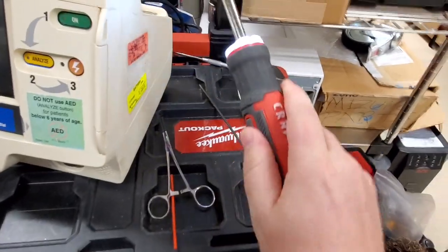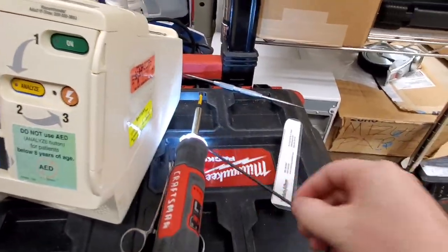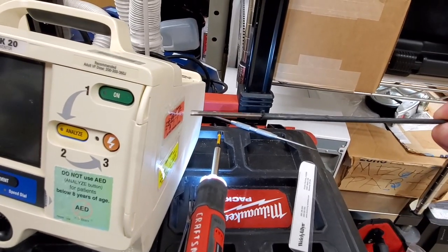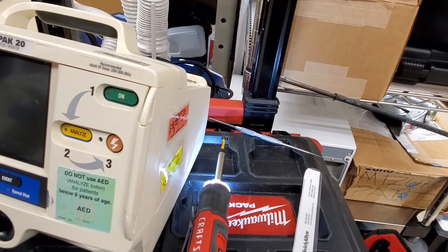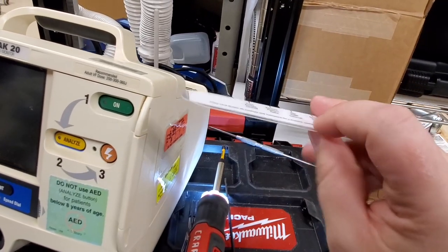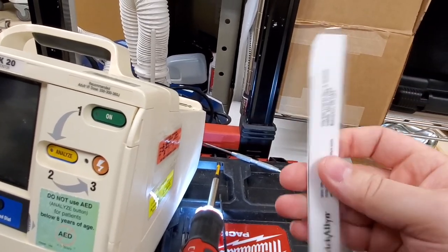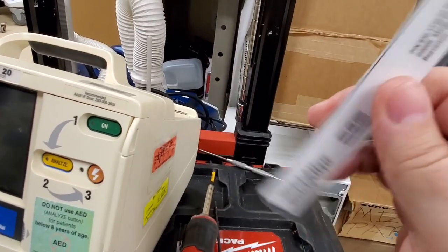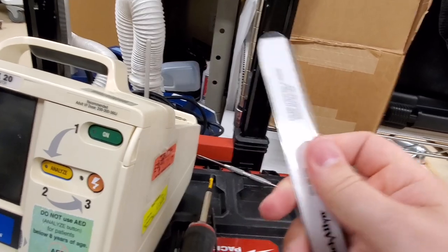Alright, the first thing we start out with is my handy dandy motorized screwdriver. I have a semi-insulated flat blade screwdriver. You can see it's a really fine point. I have a plastic laminated tool. This guy right here, I'll show you how to use it later. You can use it as a push tool, and there's a piece of foam that we have to compress. This is going to be the tool to do it.